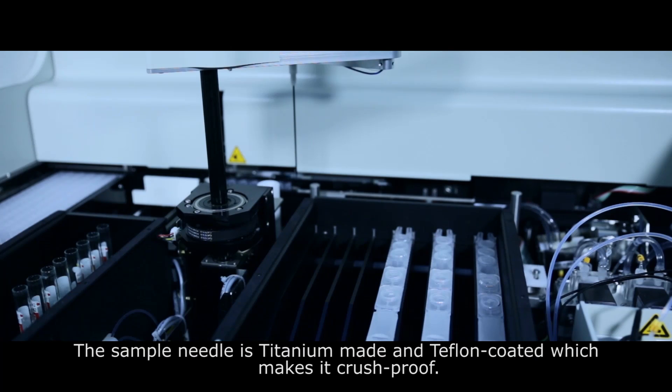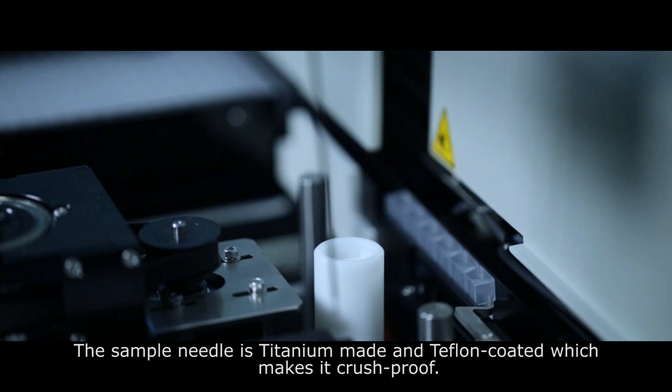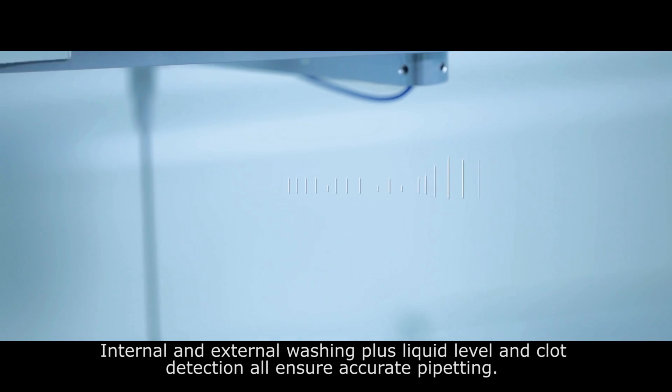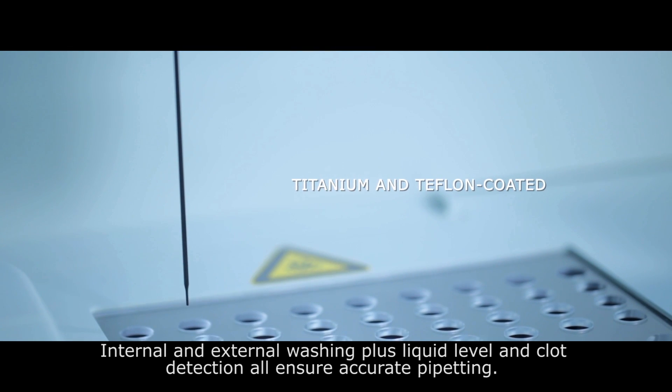The sample needle is titanium-made and teflon-coated which makes it crush-proof. Internal and external washing plus liquid level and clot detection all ensure accurate pipetting.